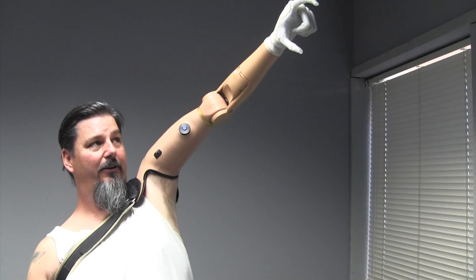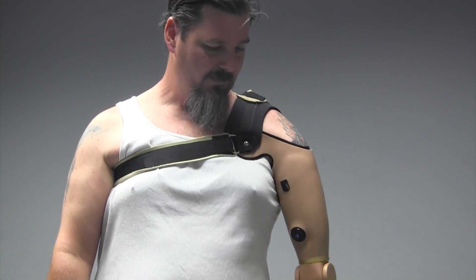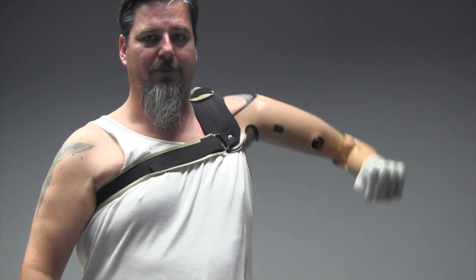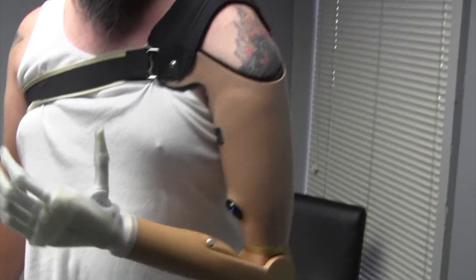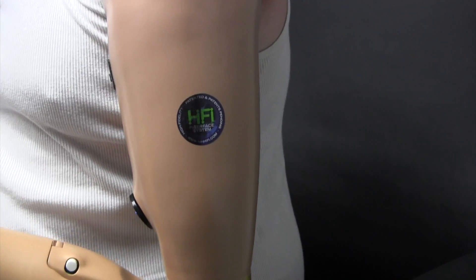You can actually go overhead. Even though it's tighter and the muscles are squeezed into the open areas, it has actually made it more comfortable and it's just as easy to get into. There are no pinch points — I can go in every direction. I've gotten way more degrees of freedom as well. The socket is lowered on the outside so I'm able to get more degrees of freedom up. It's more responsive because it's a tighter fit, so I have a better connection to all the sensors. On the previous one it was looser, which allowed sweat to penetrate into the arm, causing mixed signals. Without the air gaps and with that tight fitting, it reduces that as well.